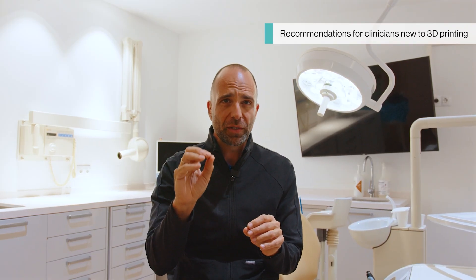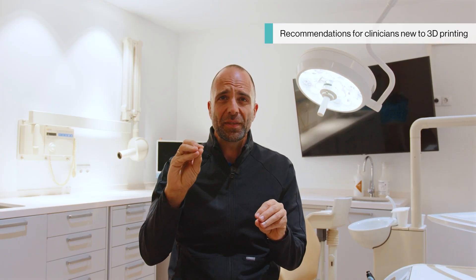A printed model is also a great first step for any practice looking to adopt in-house 3D printing workflows before moving to more advanced restorative or appliance applications. My recommendation is to start adding these iTero Design Suite models to your daily practice so you can gradually experience all the benefits that the 3D printed world can give you.